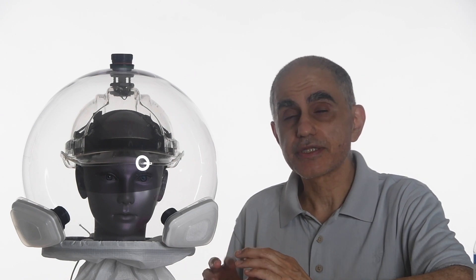So our approach is to come up with a solution that allows people basically to cut that six-foot distance down back to normal, so to speak. And our solution is a protective shield that protects your full head, but doesn't cover it, so to speak. It's not a mask, it's an unmask.